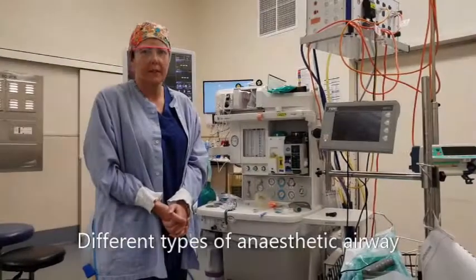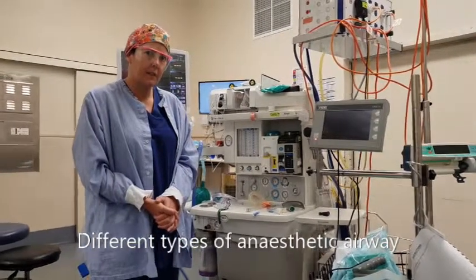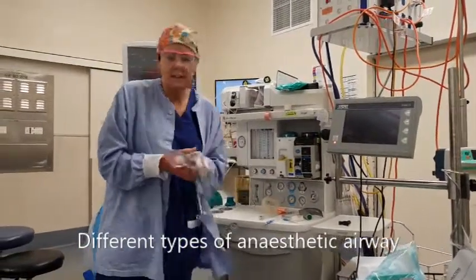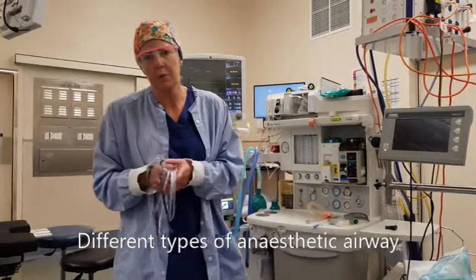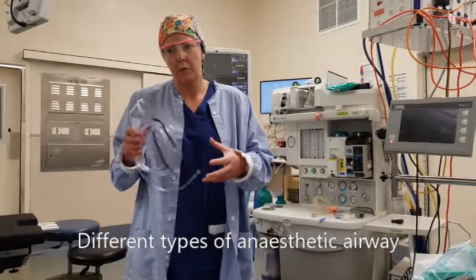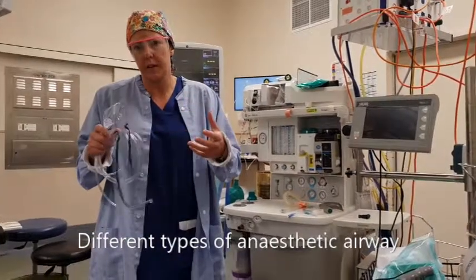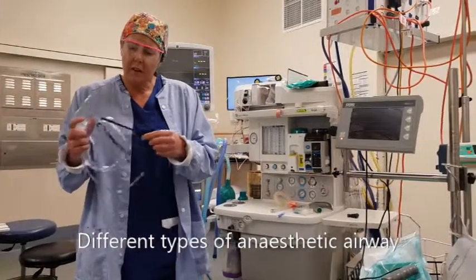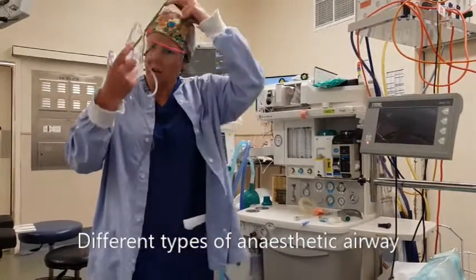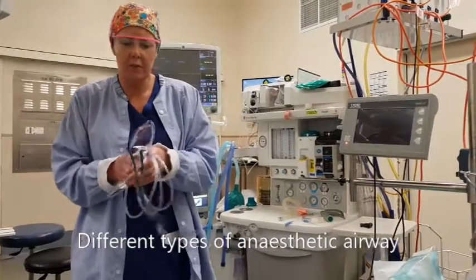Can you show us some of the airways you have at your disposal and explain when you might use one over another? Sometimes we'll have an awake or sedated patient who has a local anaesthetic on board — in our cases, a spinal block. In those cases, we just give a bit of extra oxygen and pop this mask over the face.